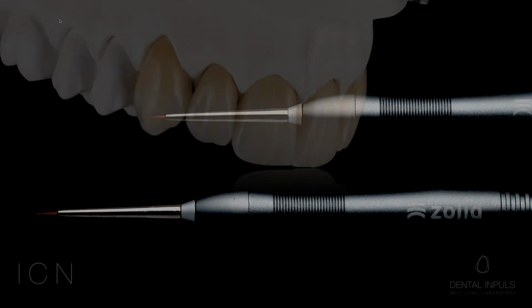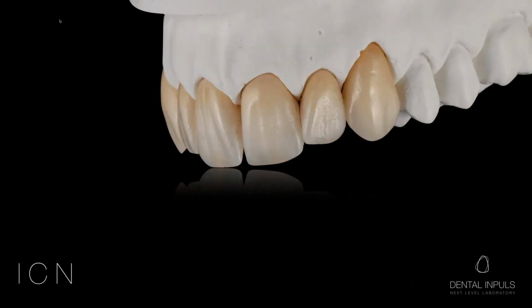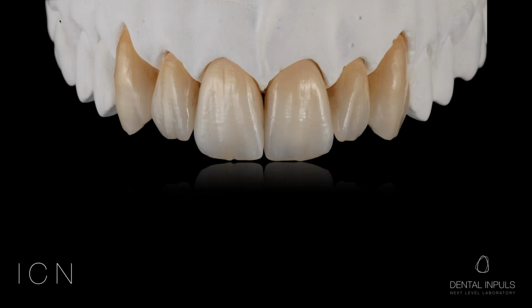And this is the completed case from the right side. This is how the finished case looks with 1 layer of shading and 1 coat of glaze. This is a little close-up. As you can see, there are no traces of brush strokes or smudges. All colors have soft transition.